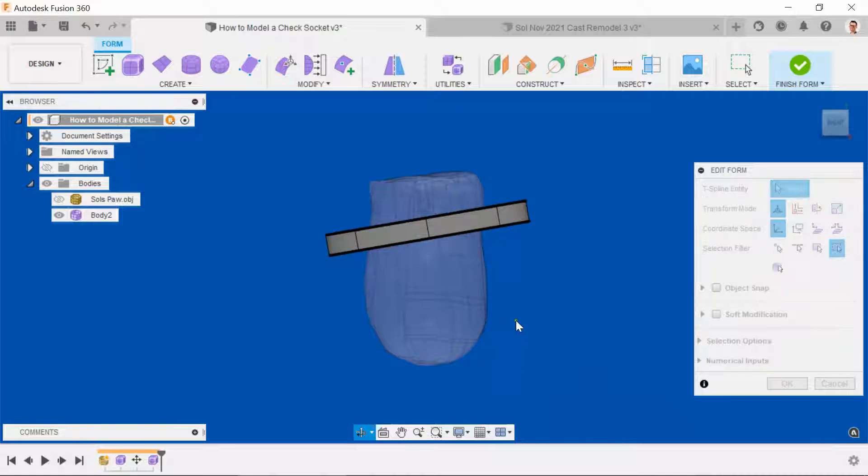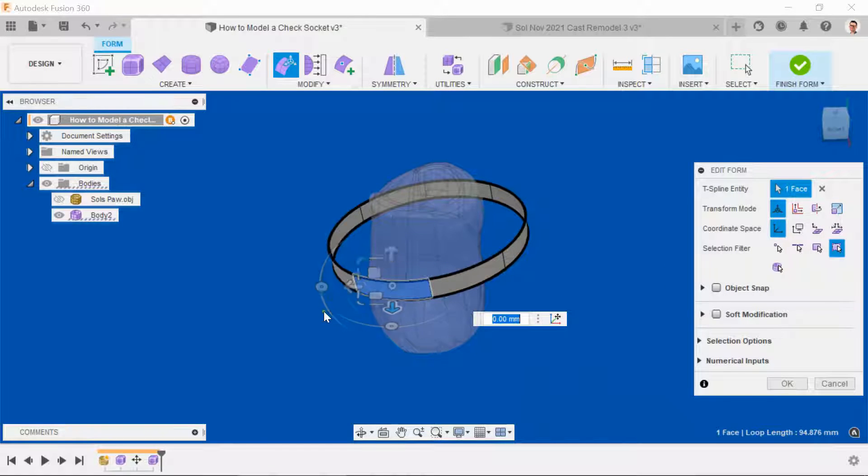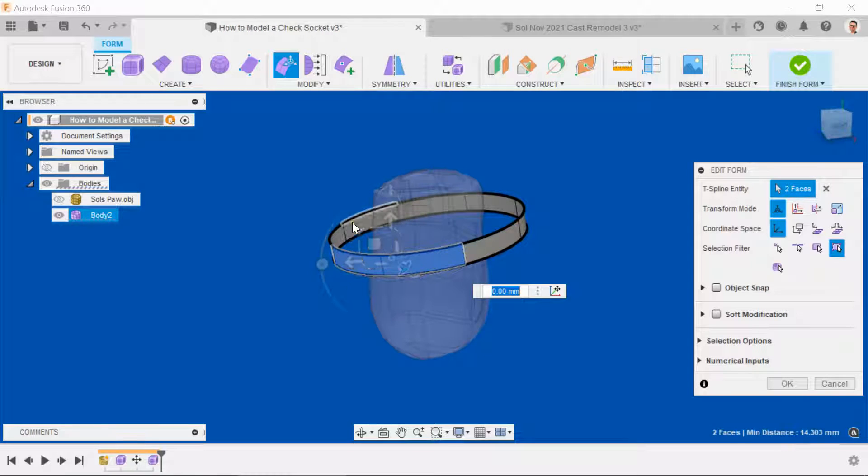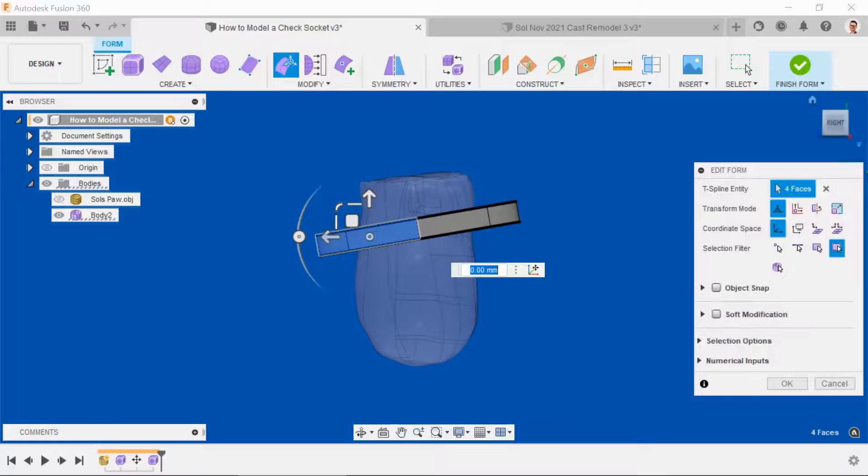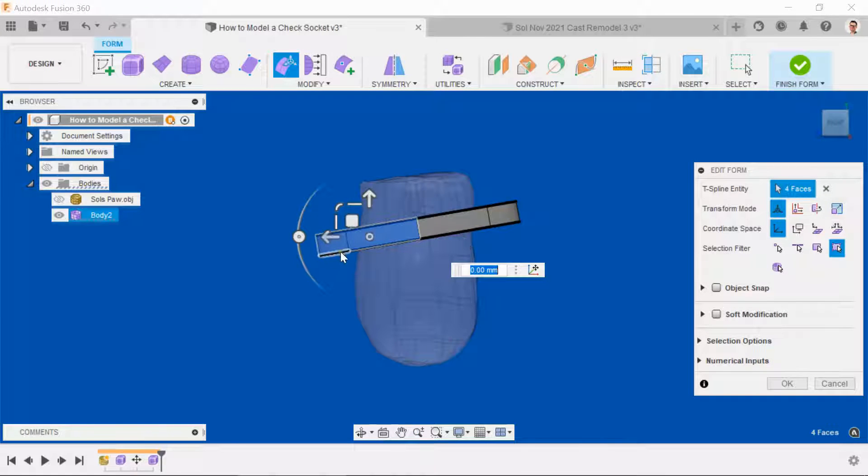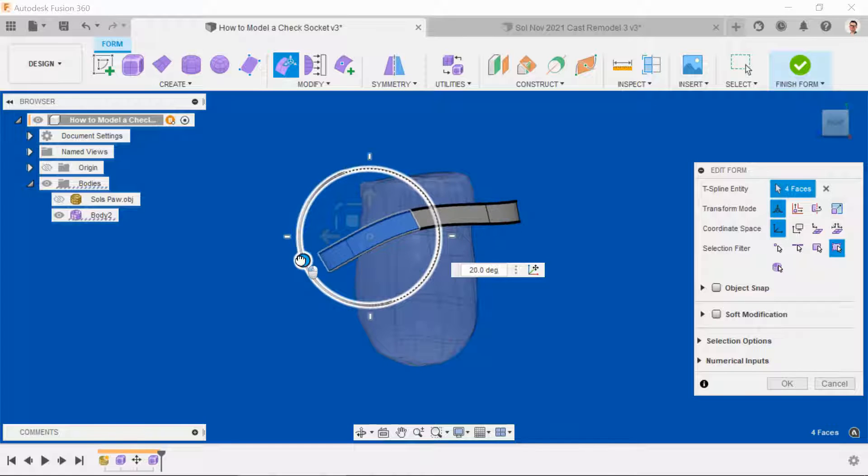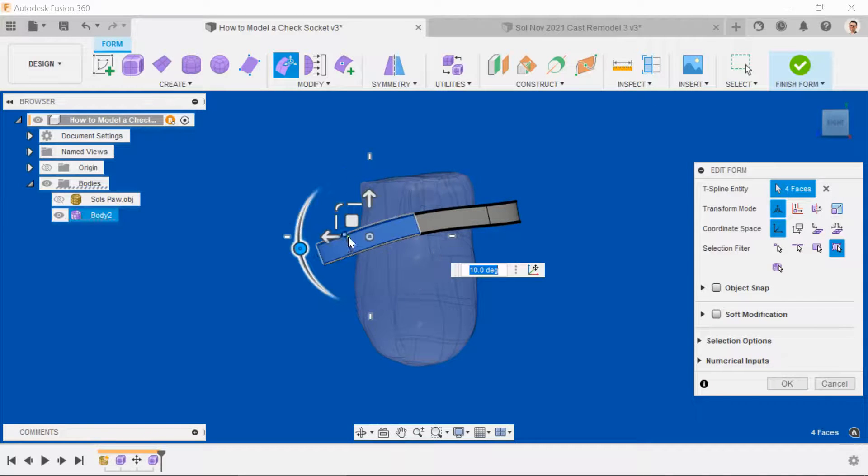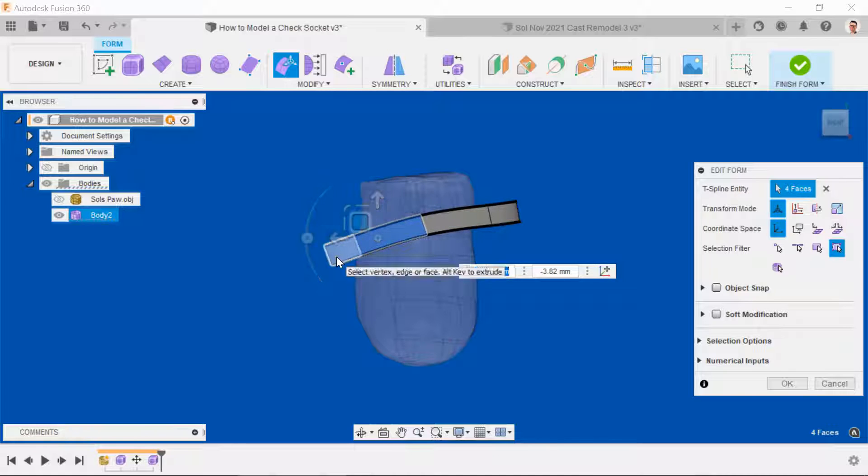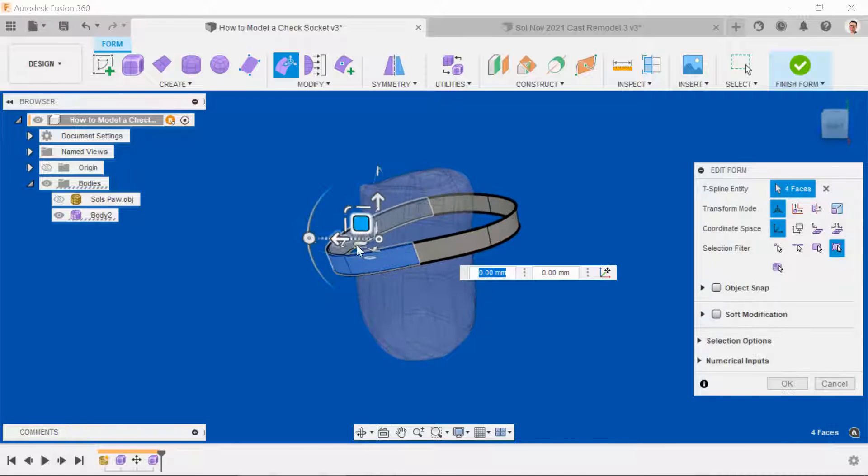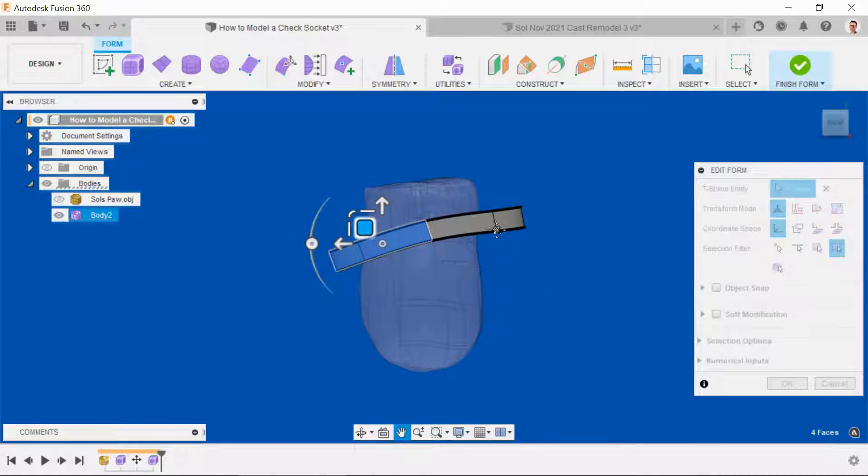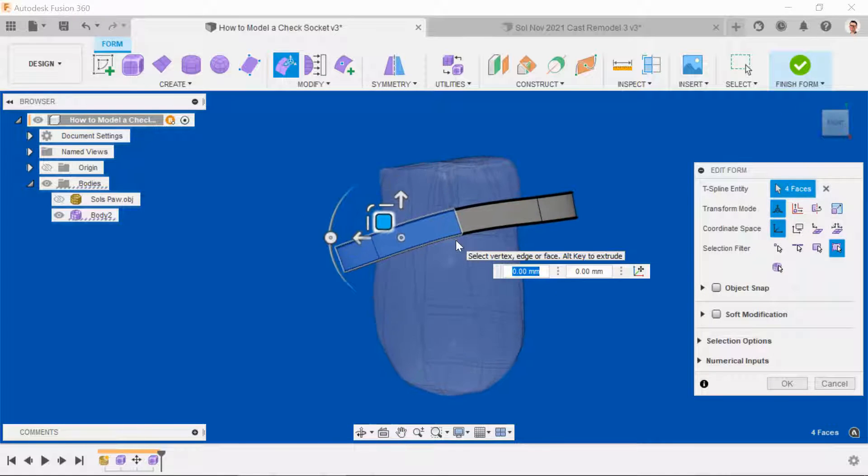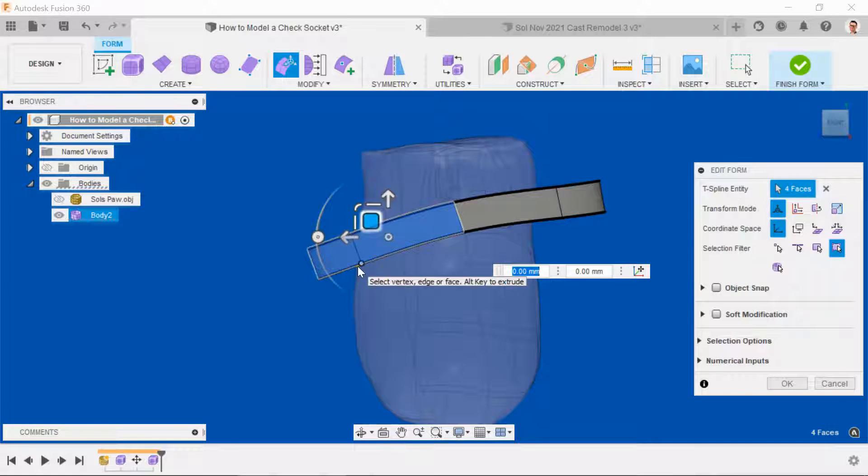Click off the object, this time select just the front four faces. Use the NaviCube to achieve the side view and the rotation wheel to drop the front of the socket. As you can see, that's lifting the geometry at the back, and we can correct for that by translating the geometry that we've got selected using this pad. Always useful to keep coming back to the side view because everything is lined up with the origin, so the NaviCube gives us the true view, and it's why we chose perspective with orthographic faces.